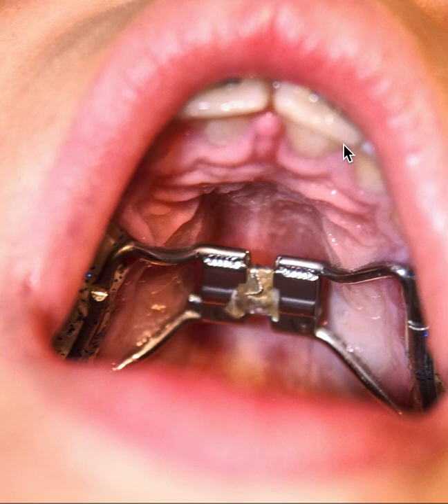So that's pretty much what it is. Why do you have this? You have this to fix a narrow arch, to fix a posterior crossbite, to helpfully jump a jaw and make an upper jaw move forward. There are all sorts of reasons you might have it. Why do you have a narrow arch? Well, it could be due to habits — oral habits, thumb sucking, bottle sucking, lack of breastfeeding, soft diet — all sorts of other habits. It could just be growth, could be genetic. There are about 20 different reasons this could occur and it could be a combination of reasons.